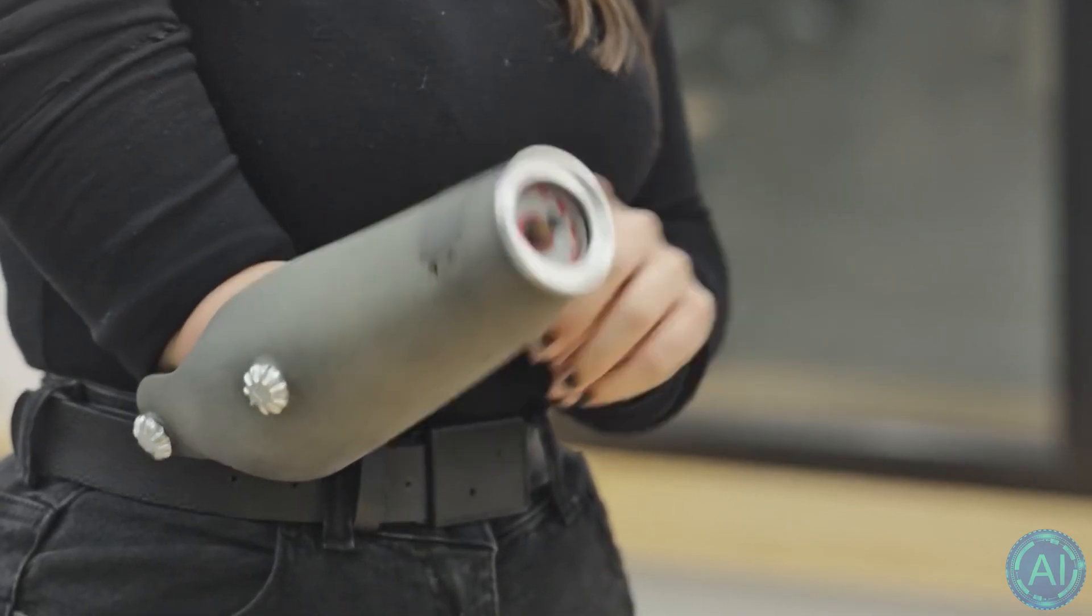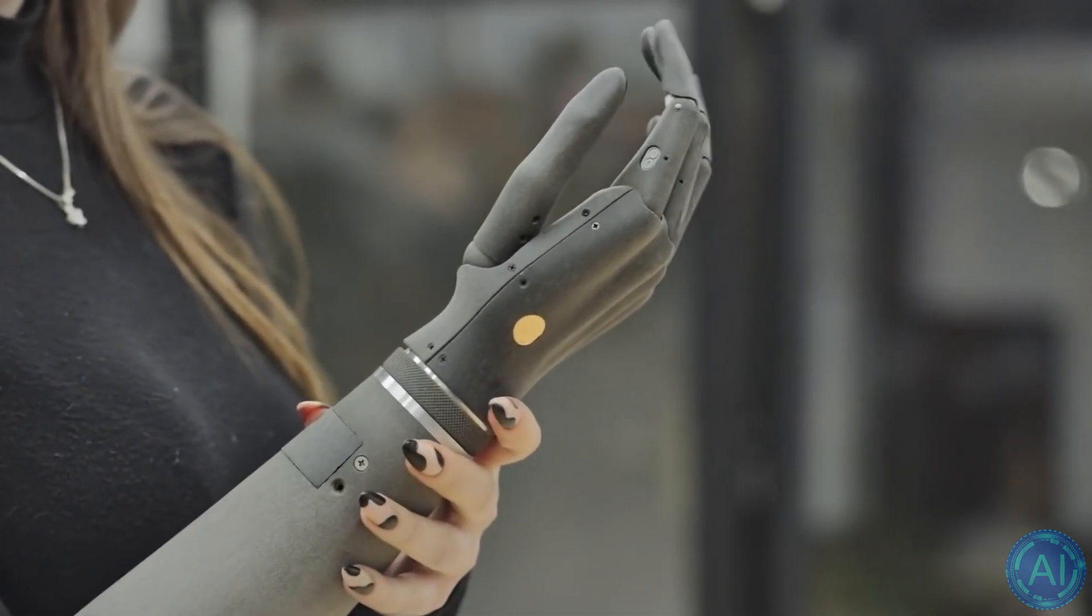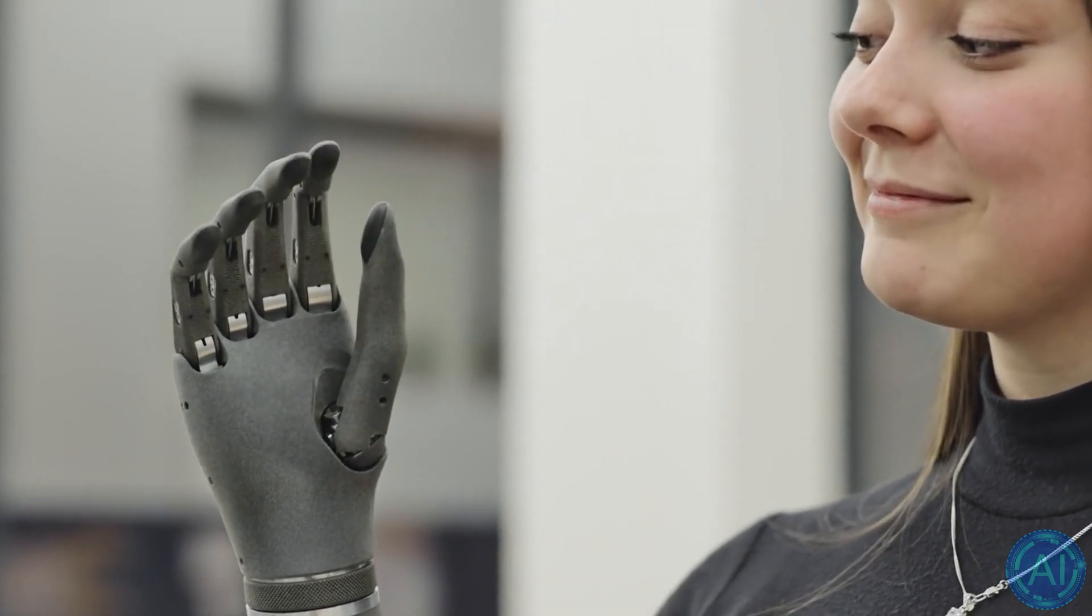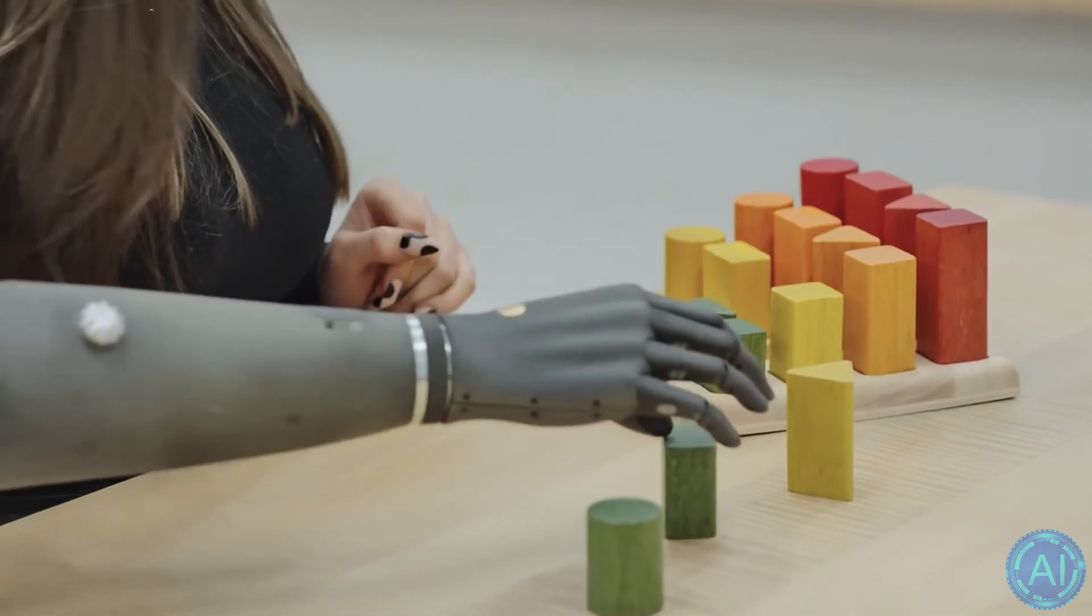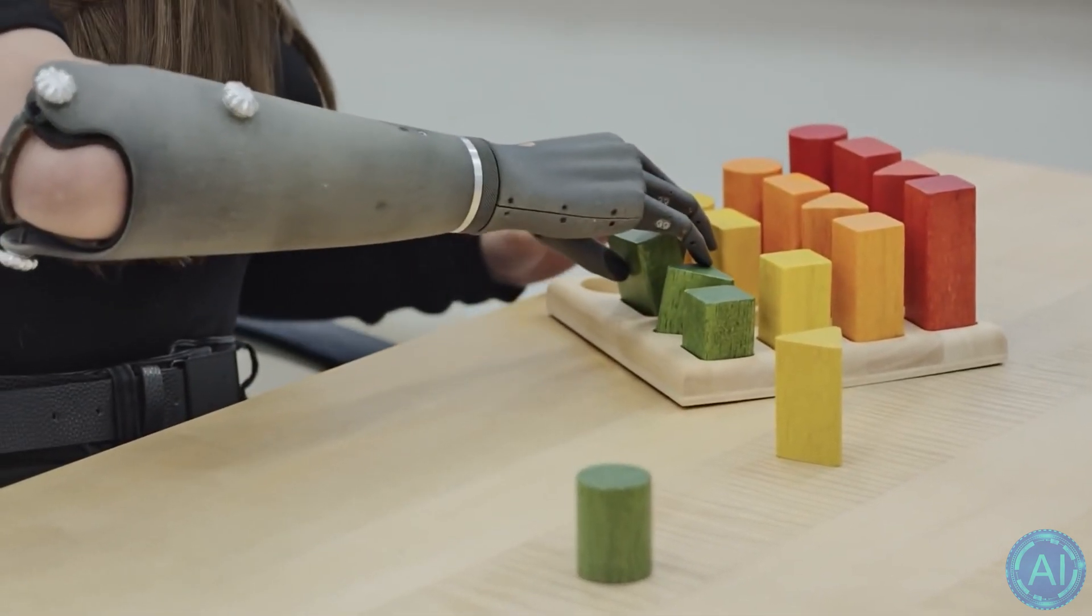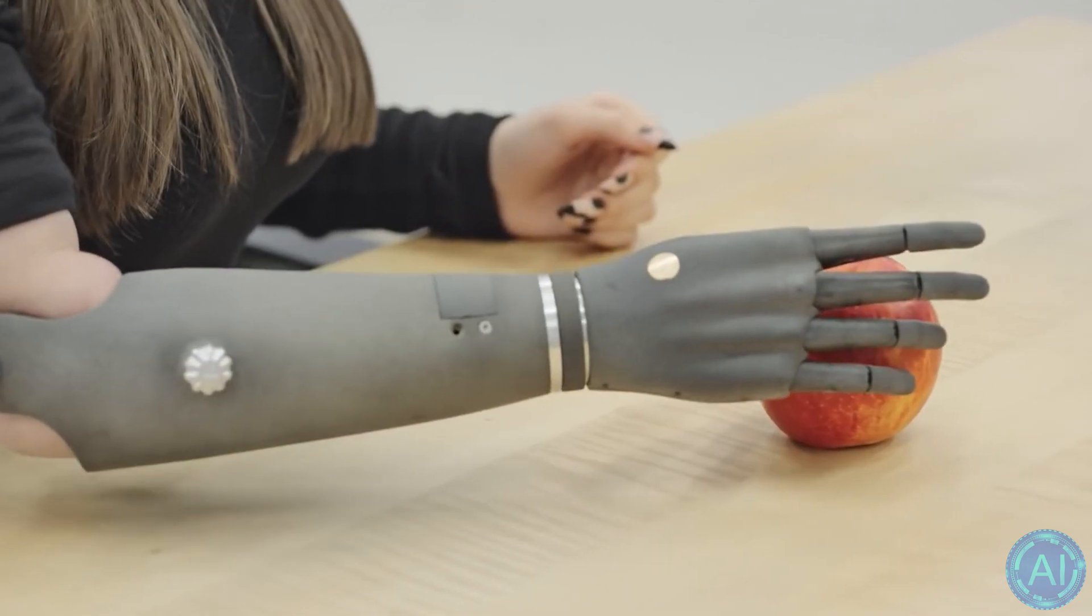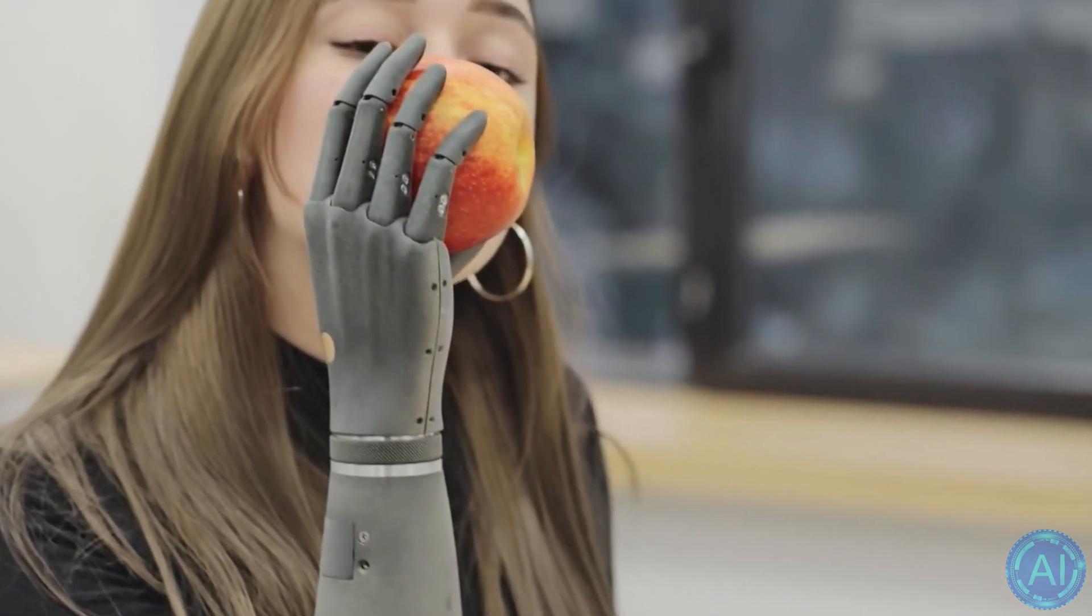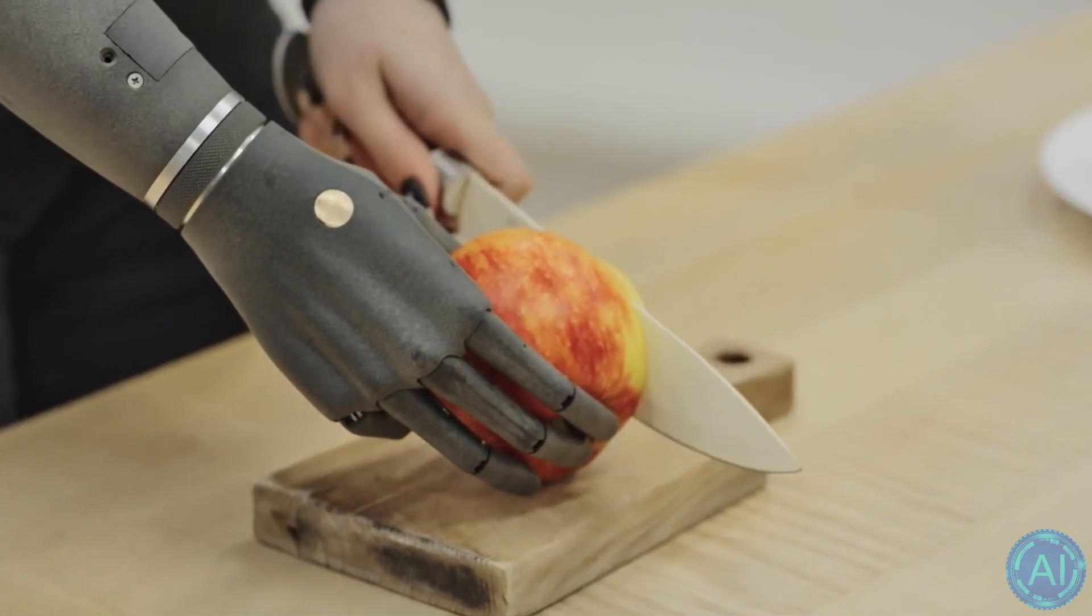The idea of the project to create a robotic bionic arm for amputees came from the co-founder Dimitri Gazda in 2017, and in 2019 the first working prototype was created. Esper Bionics is a prosthesis with intuitive control technology. A team of 11 people in Ukraine is working on the bionic prosthesis, although the main market for Esper Bionics products is located overseas. We have agreements with two prosthetic clinics in the United States where tests will start at the end of April. In the fall of 2020, the project received investments from the Ukrainian venture fund SMRK and a grant from the Ukrainian startup fund. Esper Bionics is registered in the United States, and in May its leaders hope to complete the registration of the prosthesis, after which the startup will start moving towards the European Union.